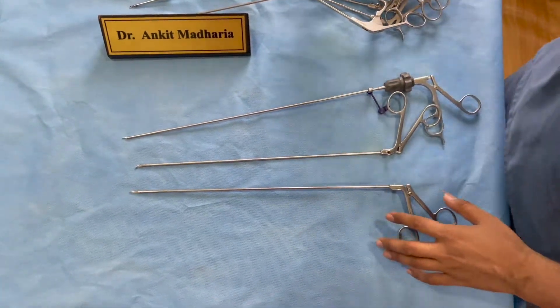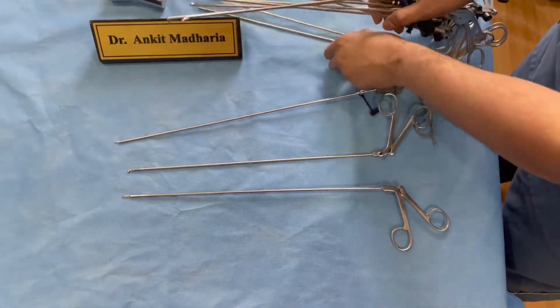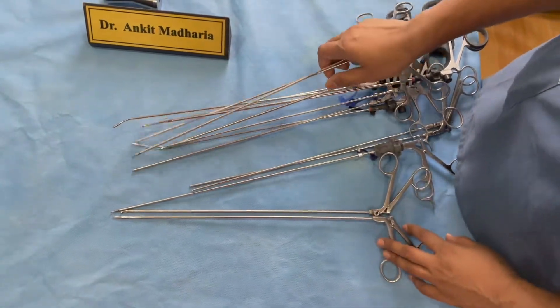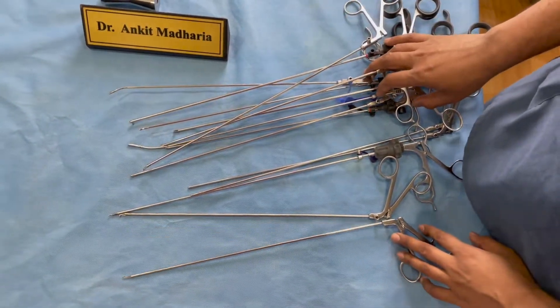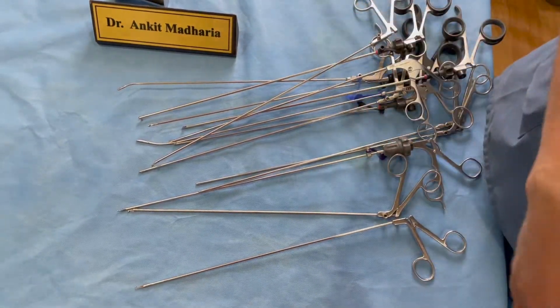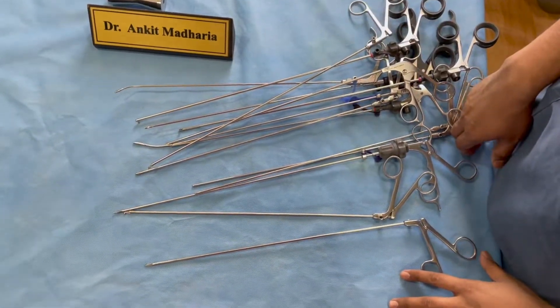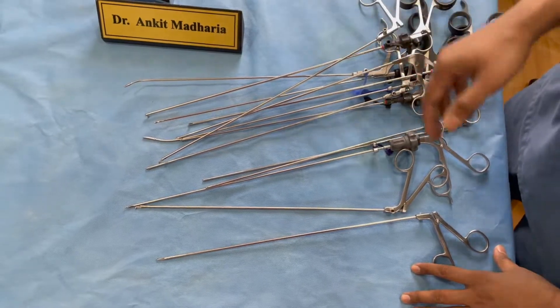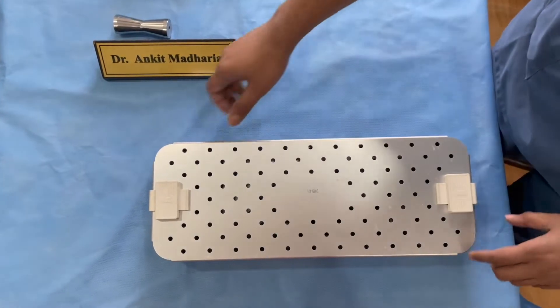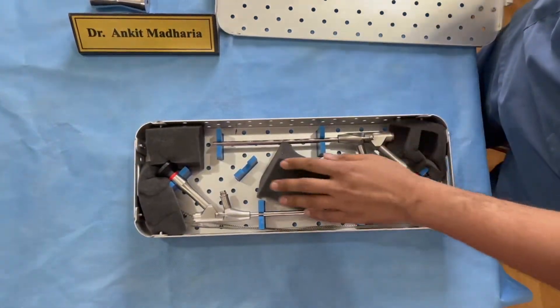You can see there are a lot of instruments needed in endoscopy, in all different sizes, and you need to keep redundancy ready — always have at least one backup in case one breaks. These are the basic minimum that everyone must have to start their endoscopy practice. Regarding endoscopes, I store mine in a box that can hold two endoscopes, so I always have a backup scope.